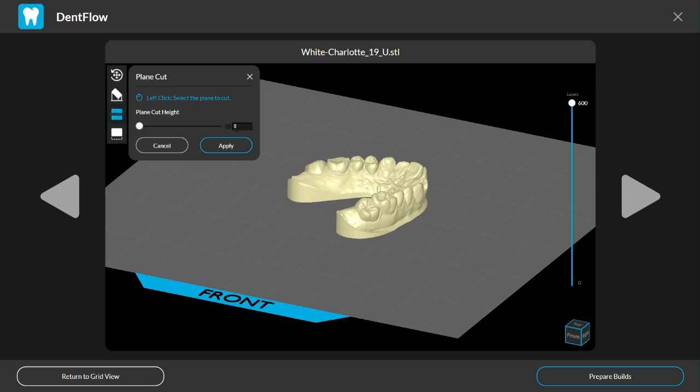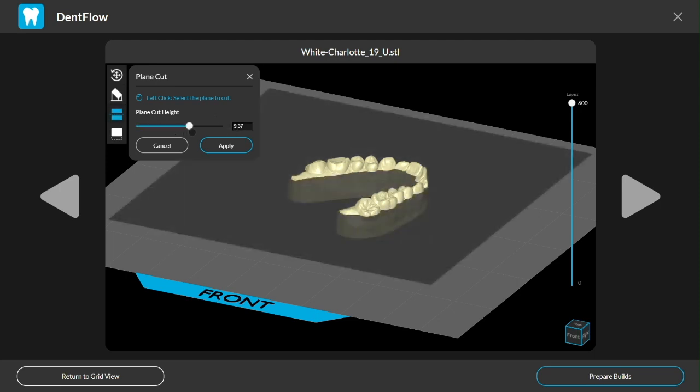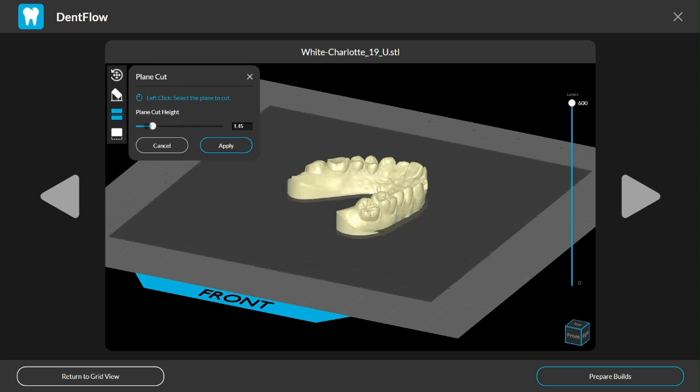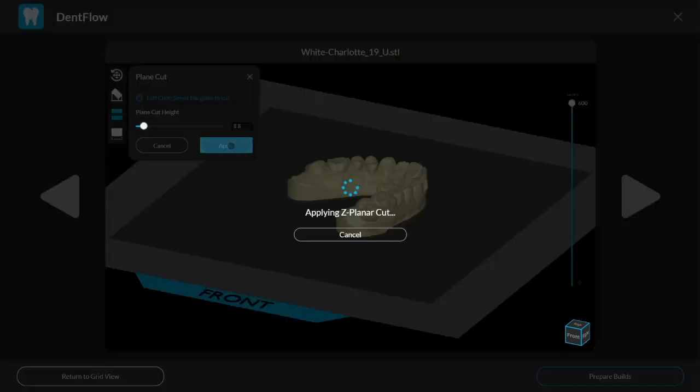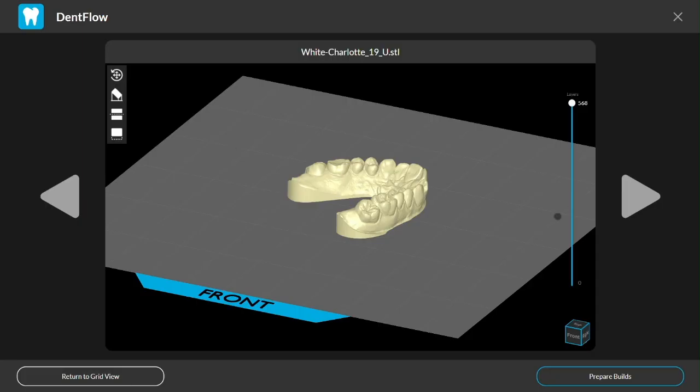As I'm sure you've experienced, dental arches can certainly be a handful to edit, so I know those are going to come in handy if I have any scan files to print. All right, all there's left to do is finalize the edits so that I can proceed to the last step.